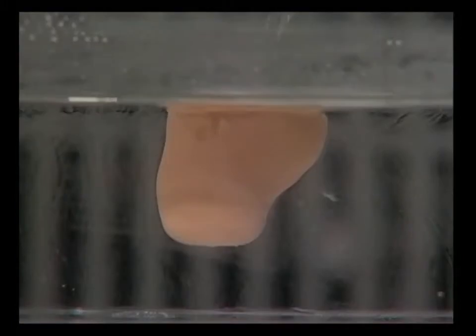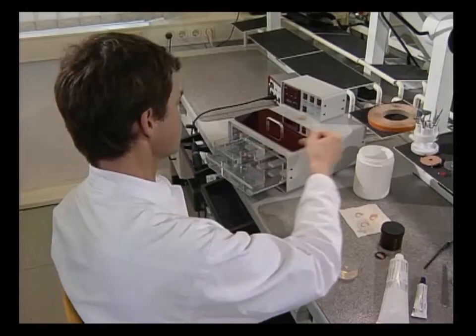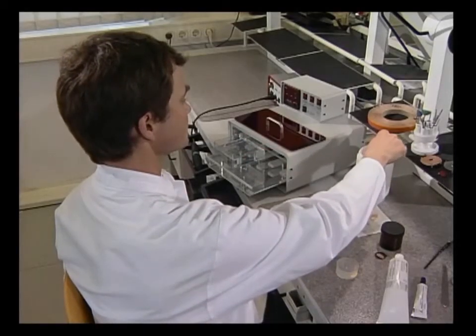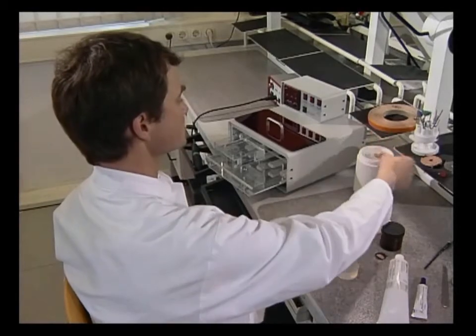The ITE blank has an even surface when cleansed with clear water five to six minutes later, and then blown dry with compressed air.